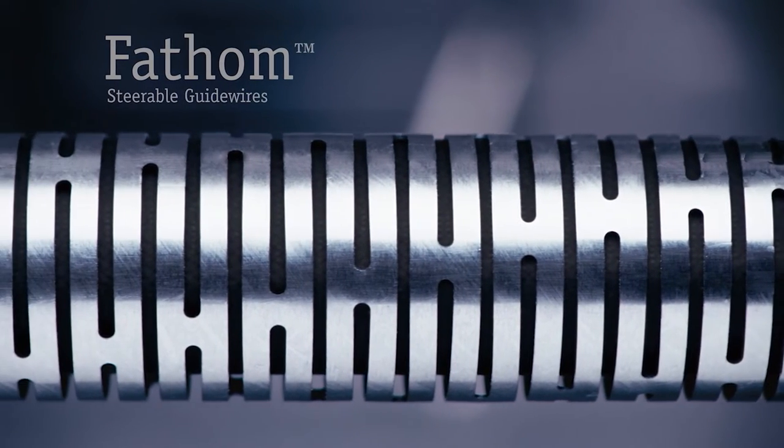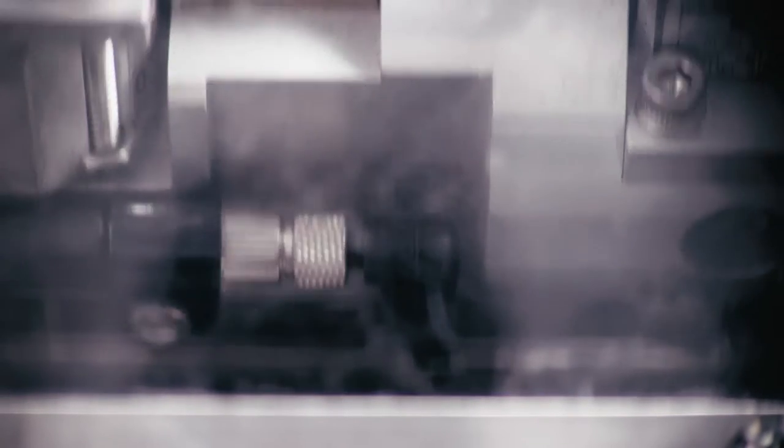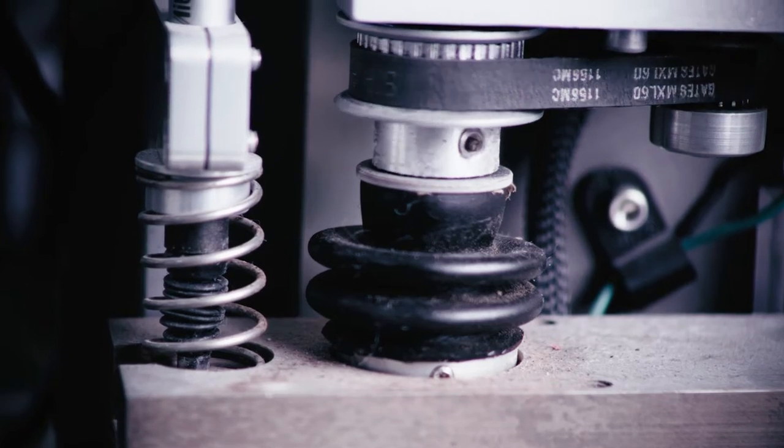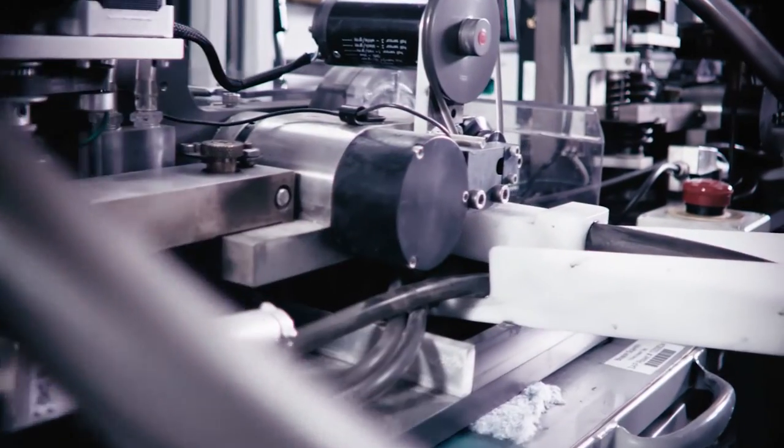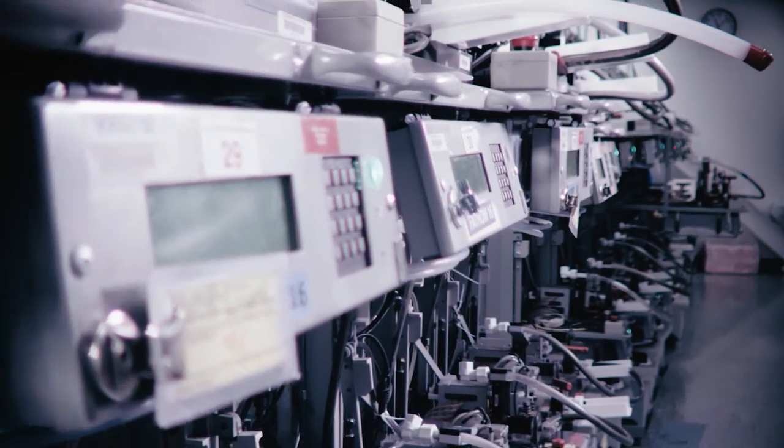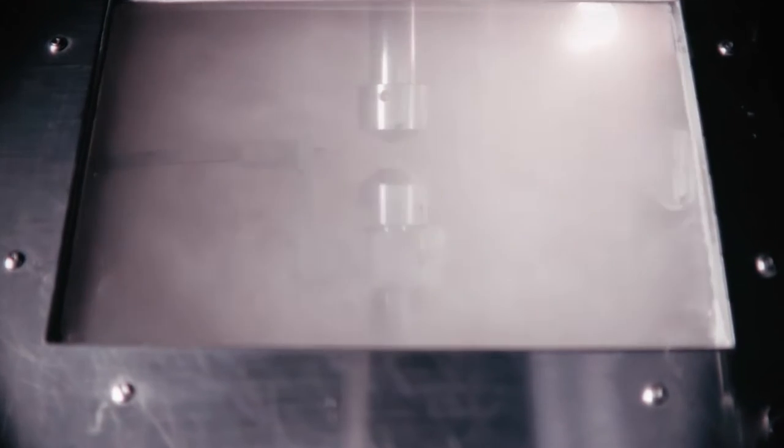Fathom's steerable guidewires feature a nitinol hypotube distal segment, a design that revolutionizes the ability to access even the most tortuous peripheral vascular beds. Diamond-cutting the nitinol hypotube and creating an alternating pattern of microscopic channels helps transmit turn-for-turn torque control.